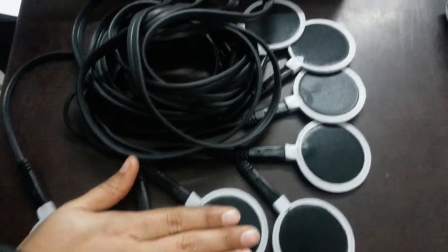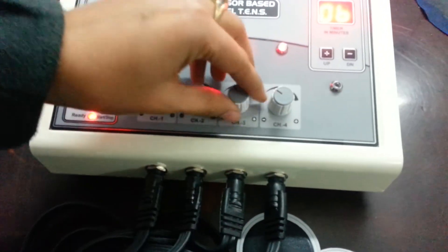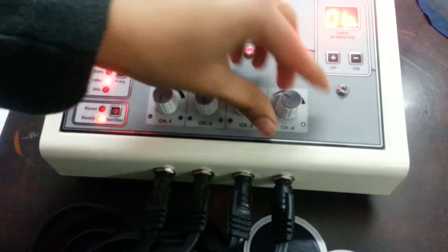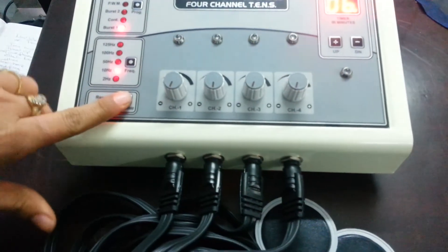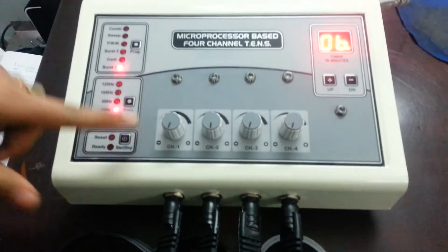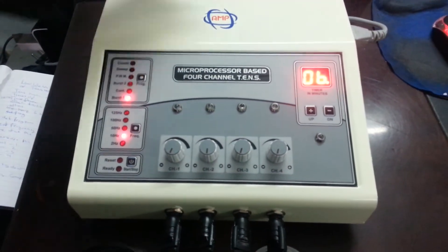Intensity down. Off the machine. Demo is completed. Thank you.